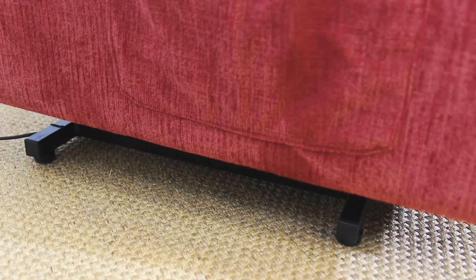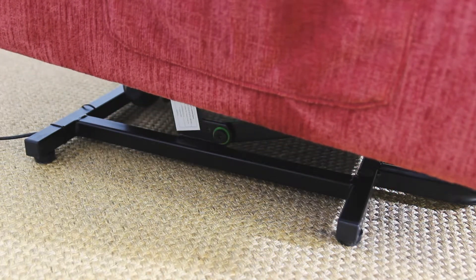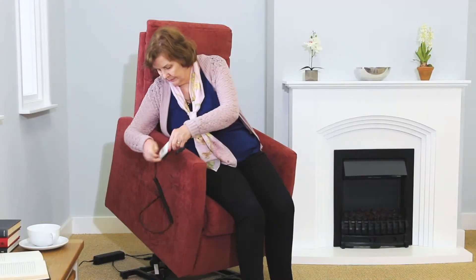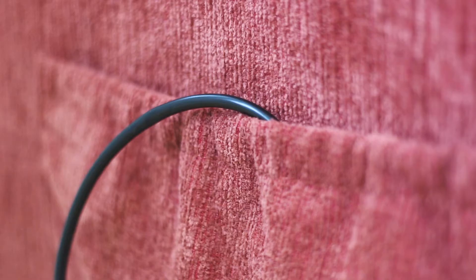The Apollo includes a useful riser motor designed to help you hold on to your independence. The riser motor will slowly lift you to a standing position or lower you into a seated position, without the need for strain on your arms or wrists. There are pockets on either side of the chair, ideal for storing remote controls or reading material.